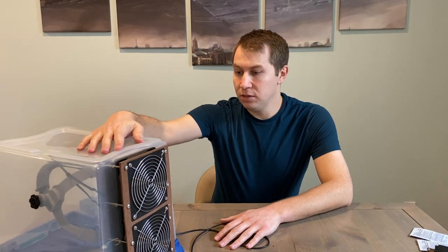The intent of this design is that it's completely reusable, which will help as the pandemic persists. Any design that's disposable, I feel, will just result in running out of supplies no matter what we build. So I focused on a completely reusable design. The fans blow air through the filter, and because it's high pressure inside, any little holes due to the bolts, the neckline, or the shroud around the tote aren't a concern because the air will be flowing out through those holes and virus particles can't enter. That's the advantage of a powered air system.